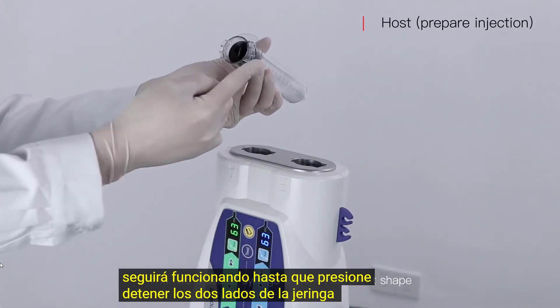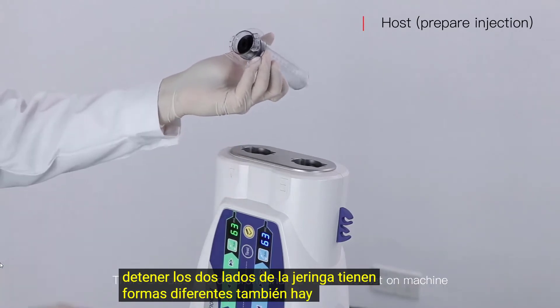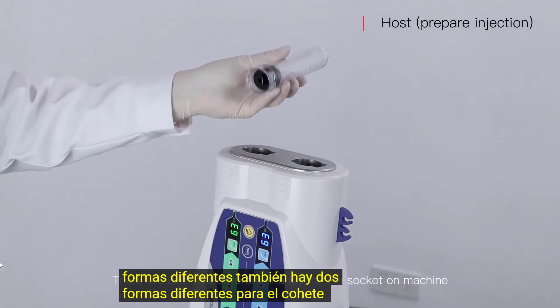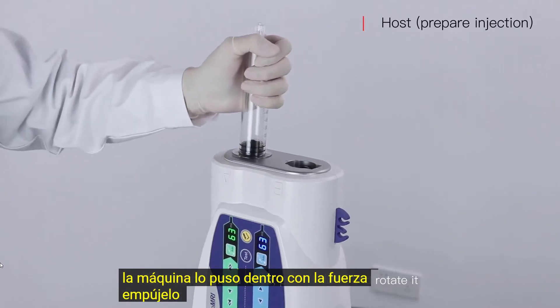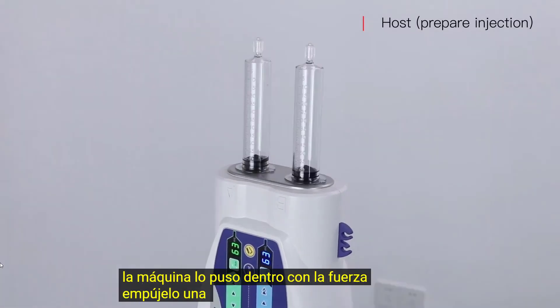The two sides of the syringe have different shapes. There are also two different shapes for the socket on the machine. Put it in with force, push it down, and rotate it.